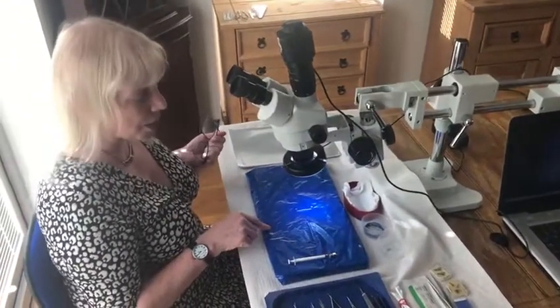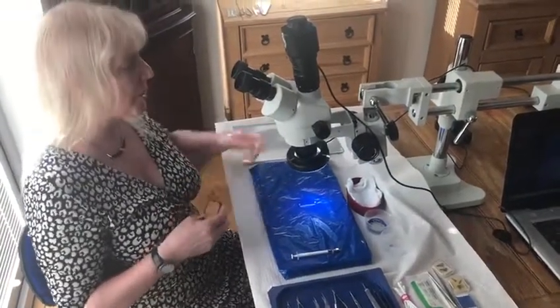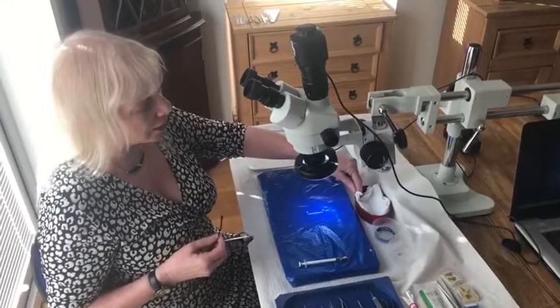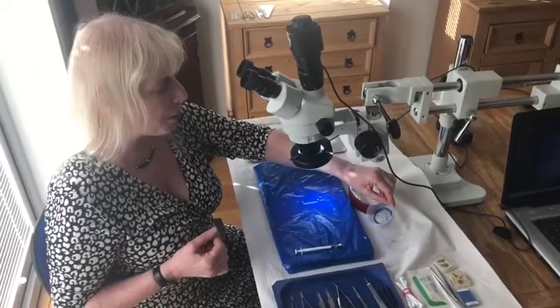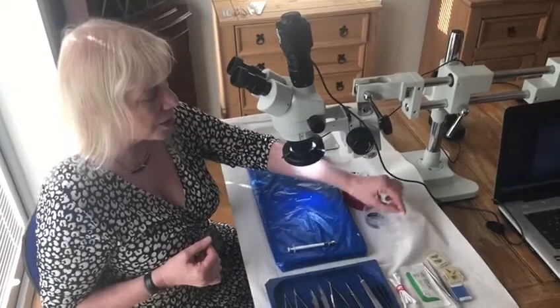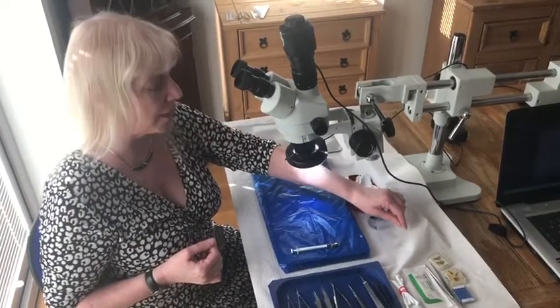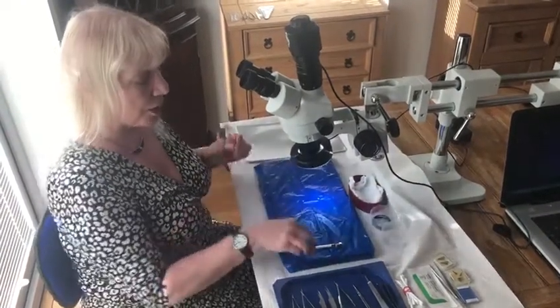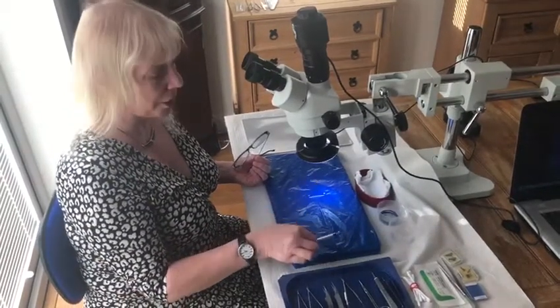Then you will need your instruments and your sundries. Sundries wise, we've just got a little bowl with some swabs in it, a little container with some paper clips and rubber bands for your retractors, and then another little bowl with a piece of background material in it for putting your saline in for irrigation. We also have a little syringe here with a Rycroft cannula on the end for irrigation.